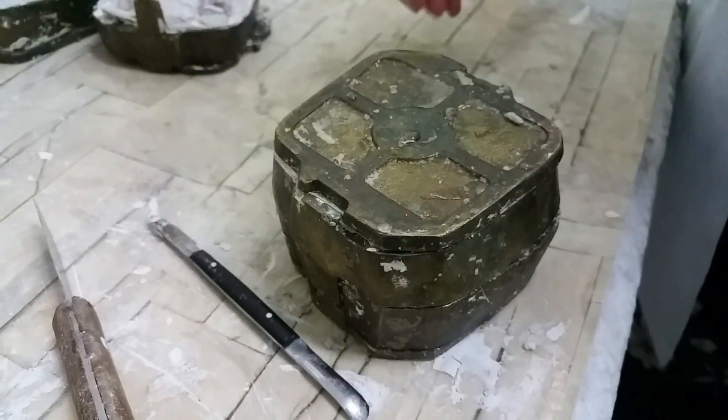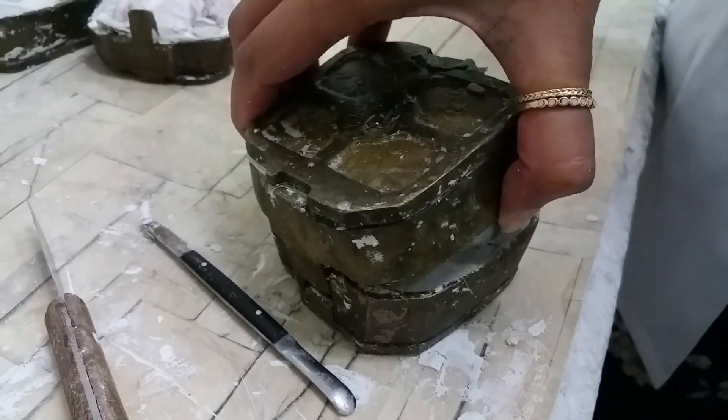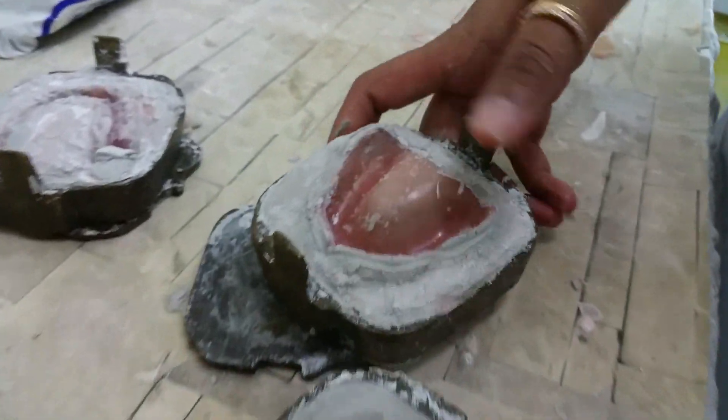The water is at 100 degrees Celsius. The flask is placed into the boiling water for exactly 30 minutes and then removed. Once the flask has cooled down, the flask is opened up and the acrylic resin is removed.